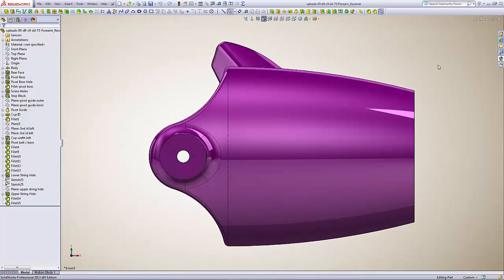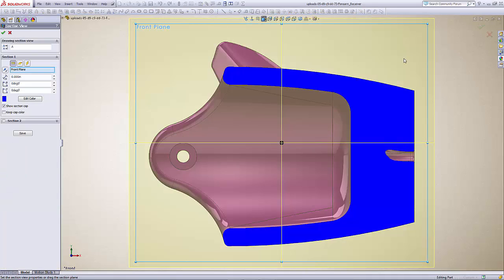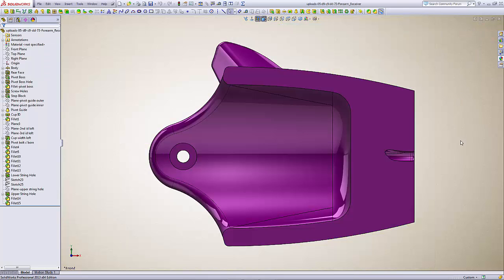This is a file you can download from Thingiverse. Sectioning it, you can see it's originally designed to make a cup-like shape so that regardless of the recipient's forearm shape, it can be used with some silicone to pour a soft insert. That way you can take up the shape of the forearm, fit it into the forearm cup, and produce newer versions as the child's shape varies or it wears out.